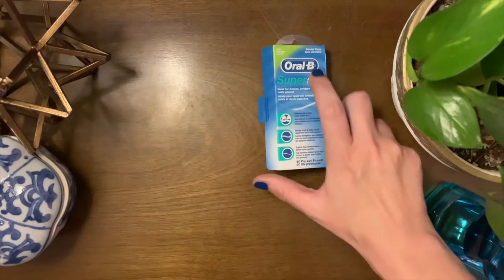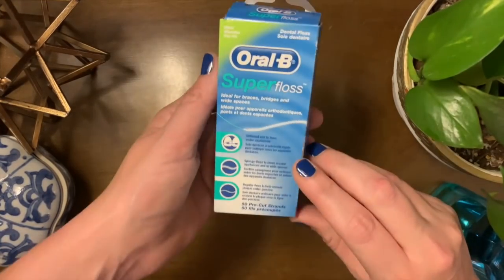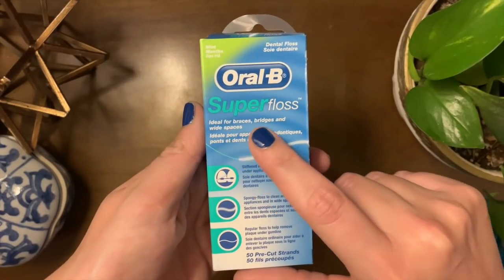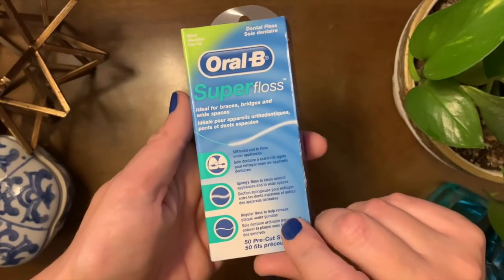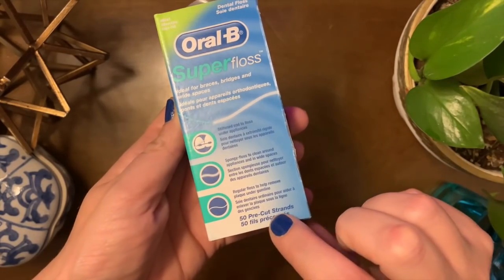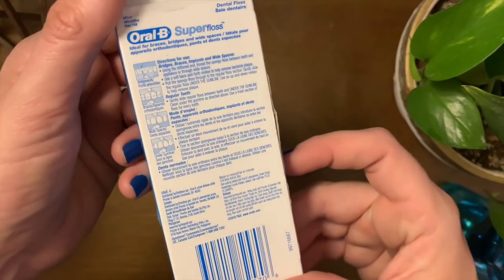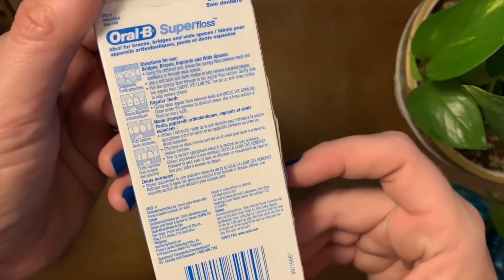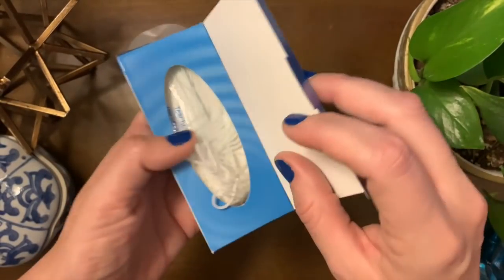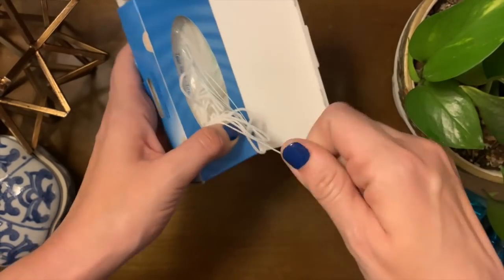Listerine with no alcohol — that's my favorite. And this is the floss that I use to keep underneath my hybrids clean. Of course I use a Waterpik as well, but there are different things a Waterpik just can't handle. This floss has three different parts to it and comes with 50 threads. It's a bit of a mess pulling one out of there — I did that.